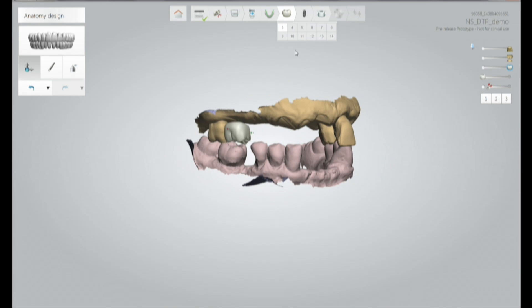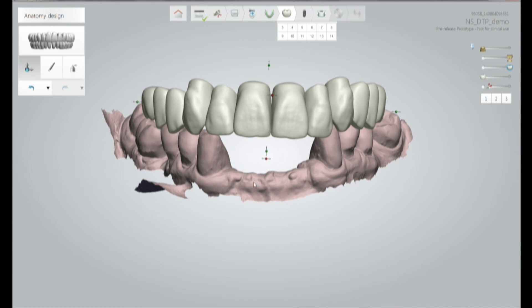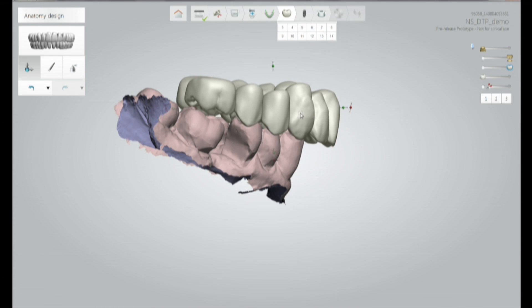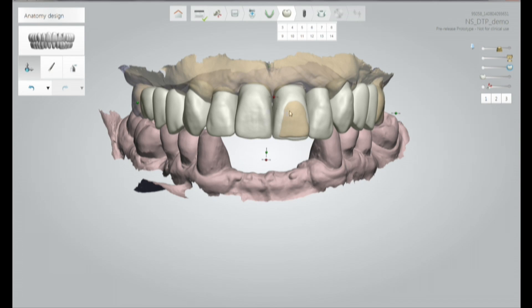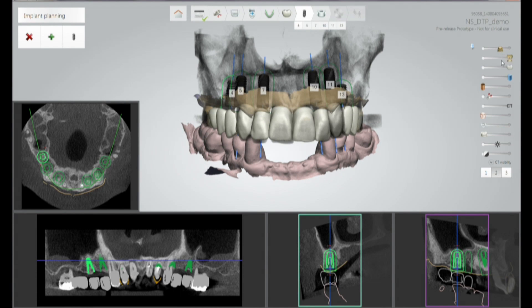The first step is to merge the two data types. The second step is to create a digital wax-up. Because we already have the tooth length we want and are keeping the vertical dimension the same, we import from a library of teeth the exact wax-up needed to fabricate the temporary. As you can see, the wax-up is complete. We can set and adjust the plane of occlusion and compare it to the bone and soft tissue in the cone beam CT data and intraoral scan data. We can also place the implants at the same time under the same software.